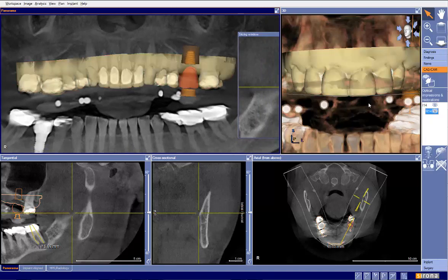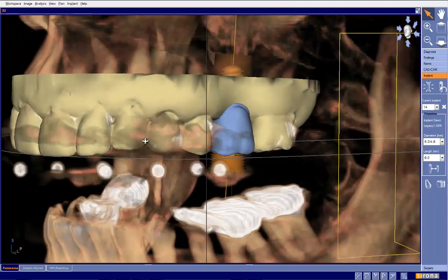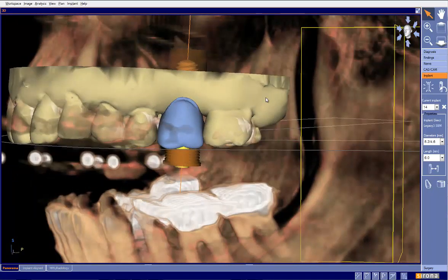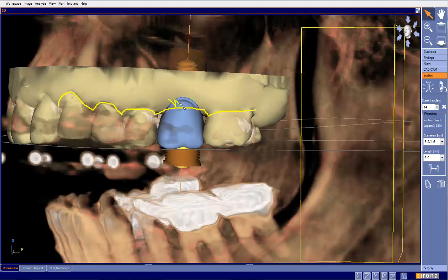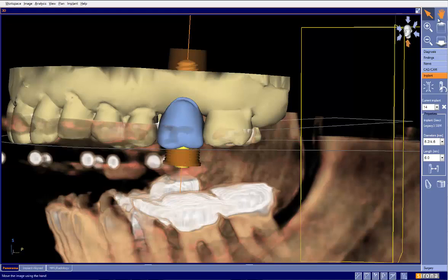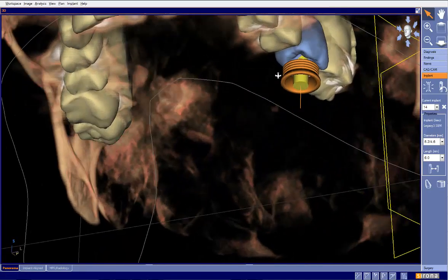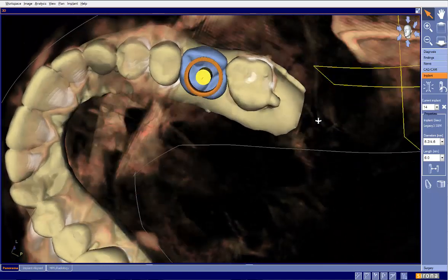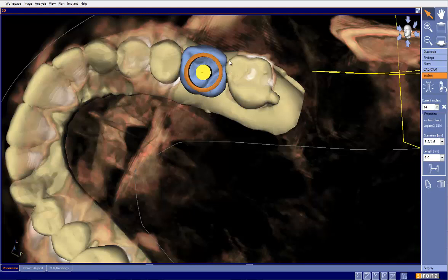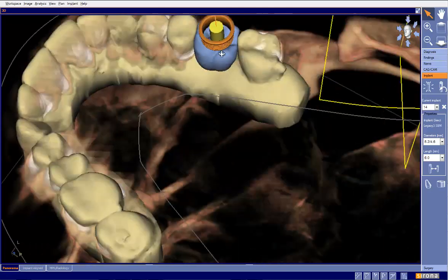I do want to reflect on one aspect of the CEREC data integration. One of my pet peeves is doing a proper drawing of the CEREC data. If we were to draw our margins, we'd want them about right here. I see it too often — the buccal and lingual margins of the teeth are drawn incorrectly, too far to the buccal. Typically when we do our margination we're doing it from this view, which leads us to just draw a circle. If there's a buccal dip, it's very easy for the computer to drop that margin quite a bit buccal, and the same with the lingual.